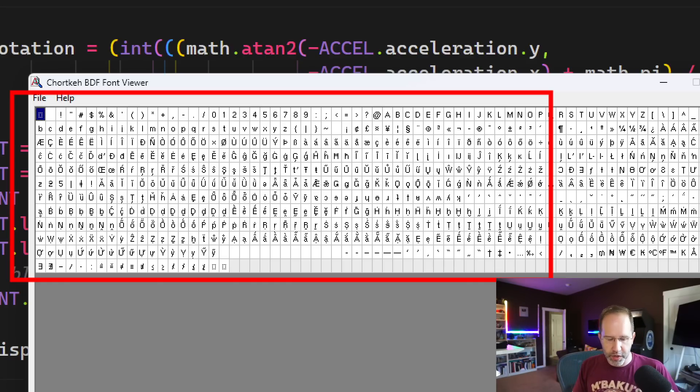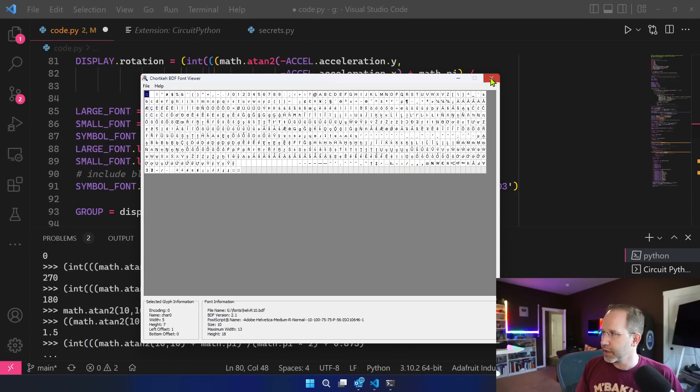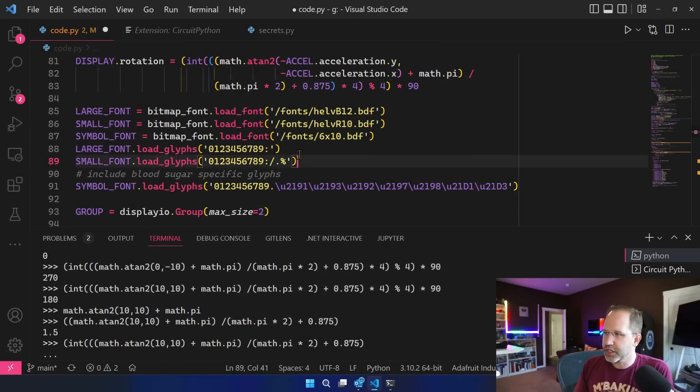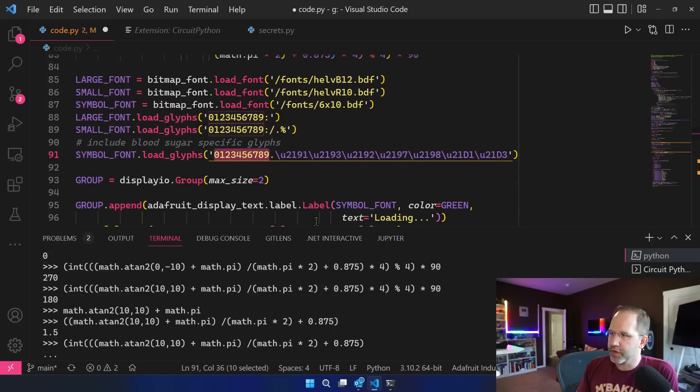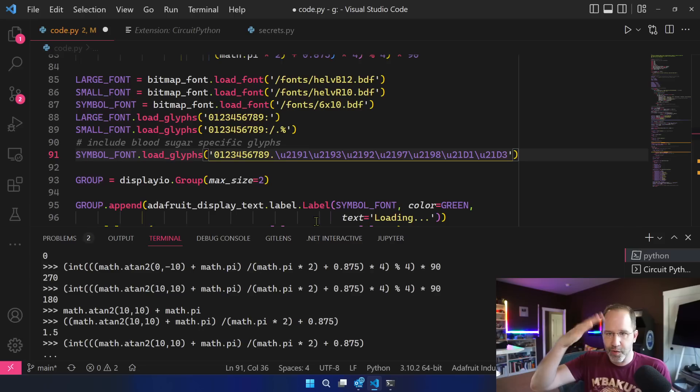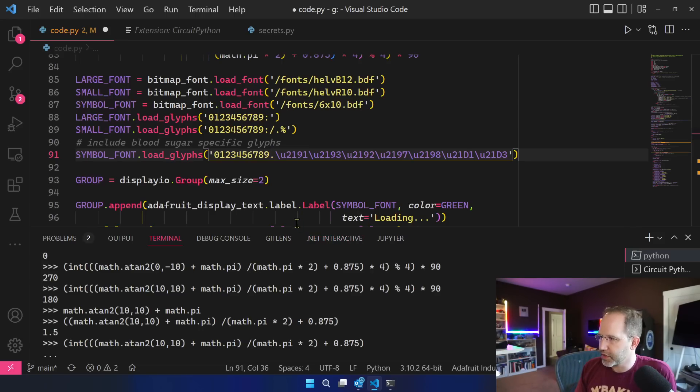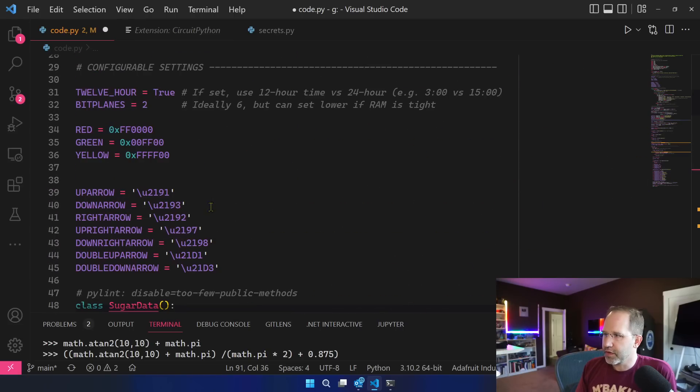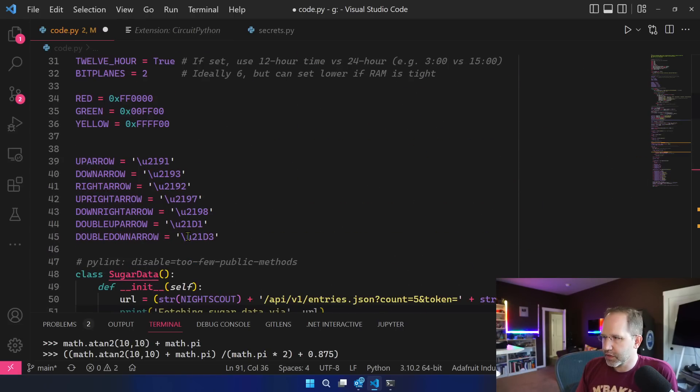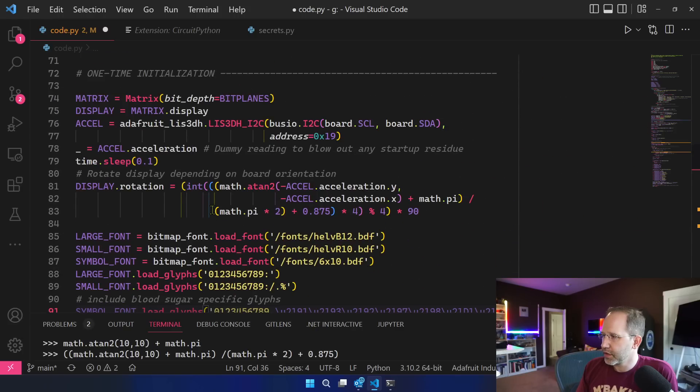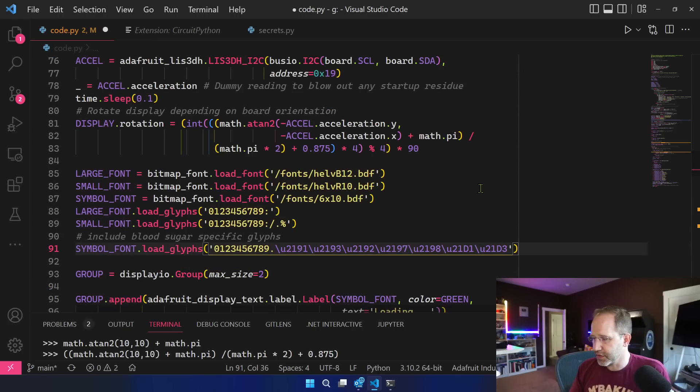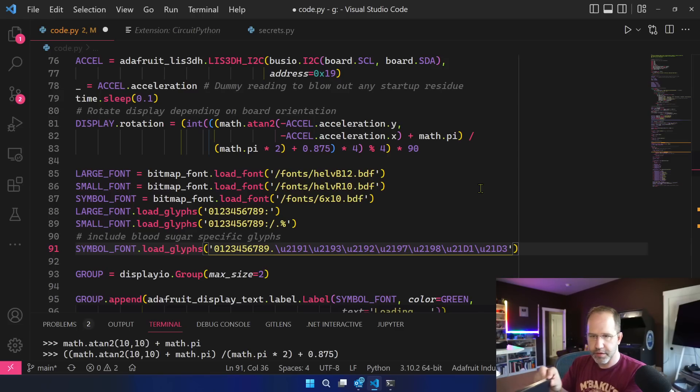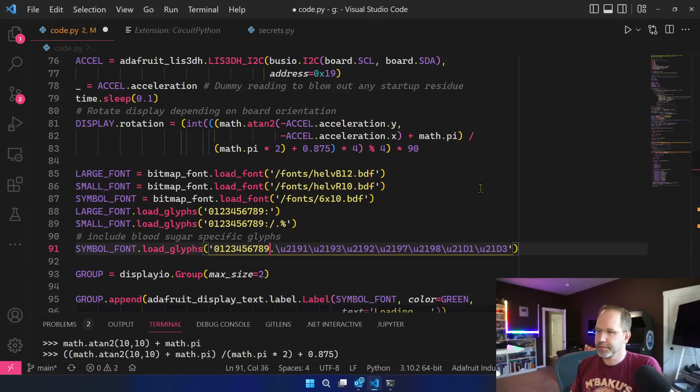So here's a bitmap font, it's almost like a sprite and you say well which one of these do I want to load? I want them all? Do I want just one of them? You can save memory by saying just give me these glyphs. So here I'm asking for the symbol font, the numbers that I want, and then the arrows that point in a certain direction. And I don't think I've necessarily got all of these done yet. I need to make sure that I've got seven glyphs here and I've got one, two, three, four, five, six, seven glyphs there. And then we can see that my screen just booted back up. Blood sugar is now 83 so that succeeded.